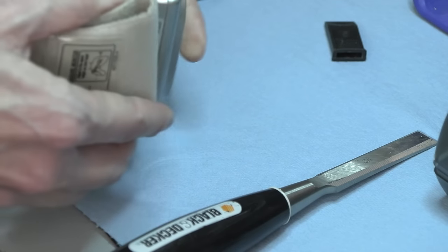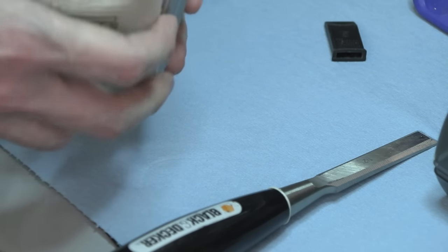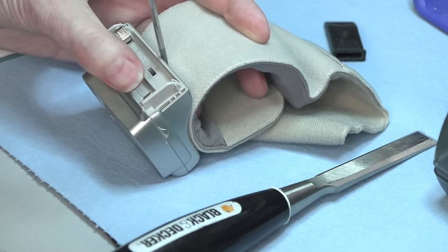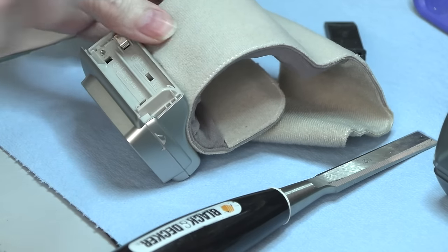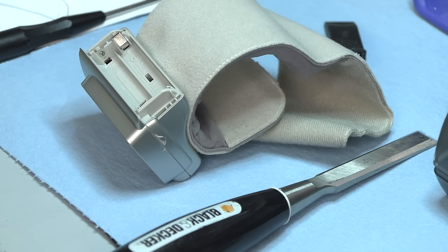Definitely feels like a fastener. So, how would they have done that? I guess I'm gonna see if I can just cut the cuff off.